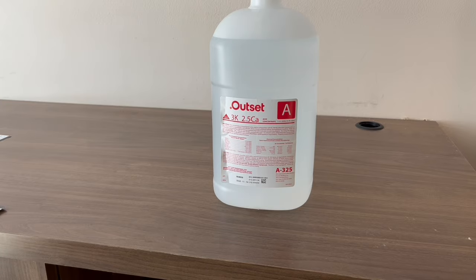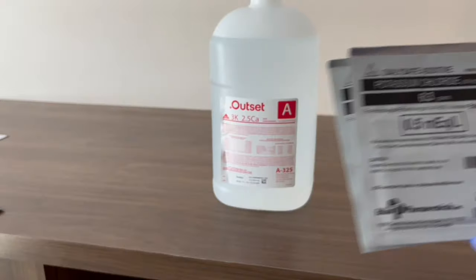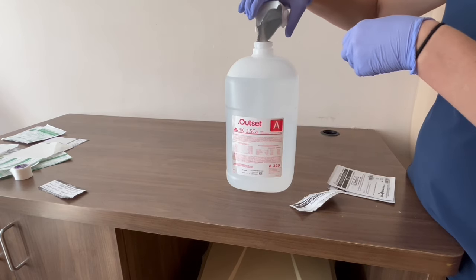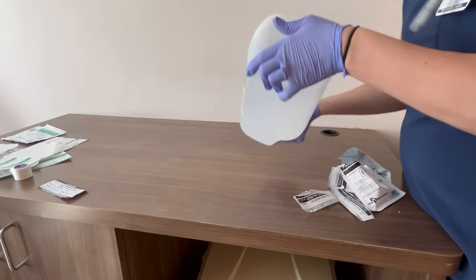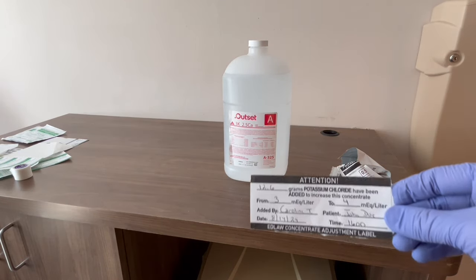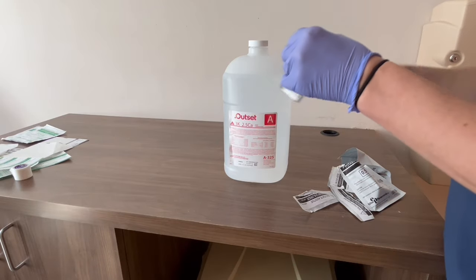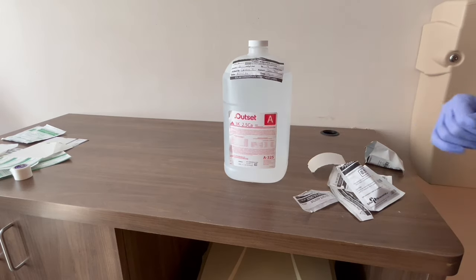To add calcium or potassium to the dialysate solution, take the packets provided for dialysis and add the ordered amount. For example, if the doctor ordered 4K but all you have on hand is 3K, you will need to add 1 mEq per liter to the solution. In this case, take two packets of 0.5 mEq of potassium, add them to the solution, and shake well. Then, using the provided label, write the new solution. Each packet tells you how many grams there are — for potassium, there are 6.3 grams per packet. Using two packets adds 12.6 grams total, changing the solution from 3 mEq per liter to 4 mEq per liter.